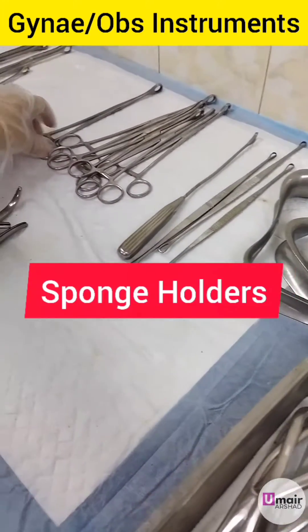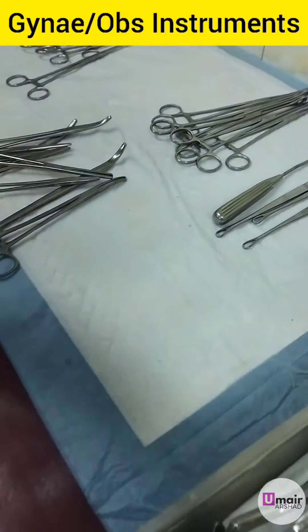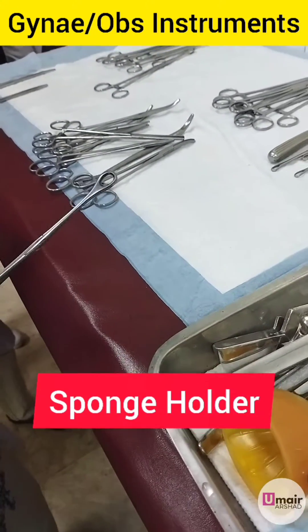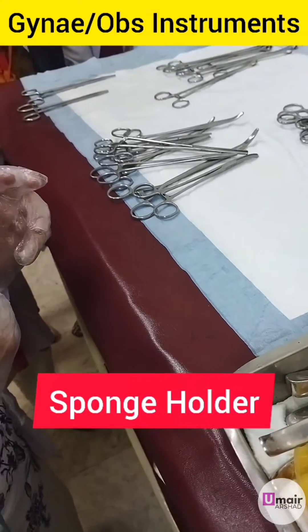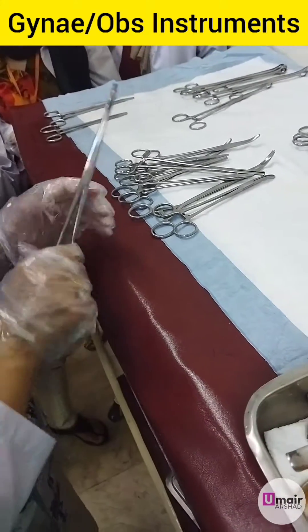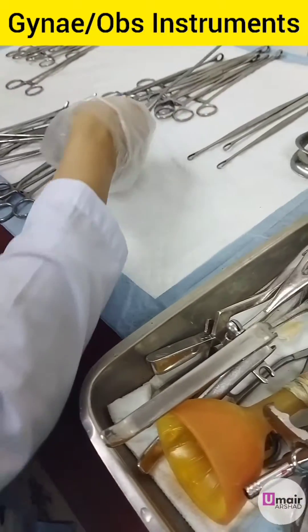These are the sponge holders. We can hold a sponge with this when we are scrubbing the patient. We can also hold the anterior lip of the cervix with this. We can even remove the products from the cavity in case of miscarriage, and this is then followed by curettage of the cavity.